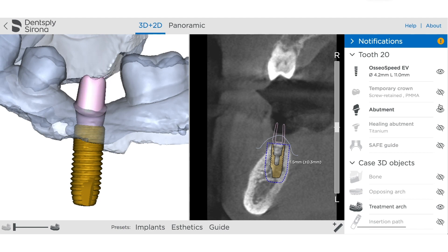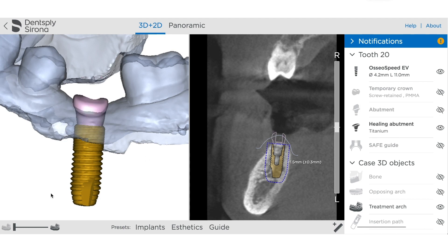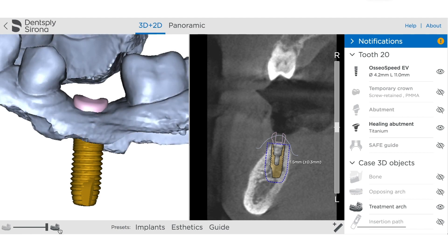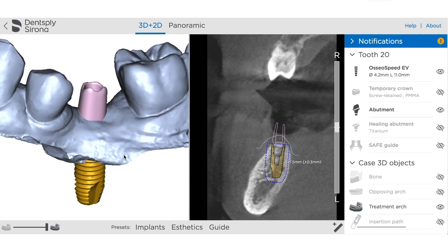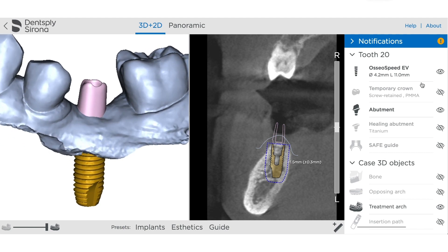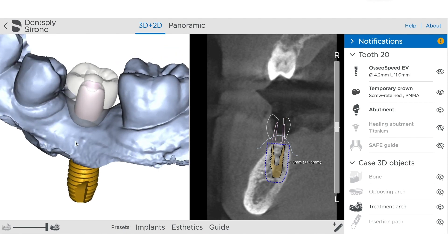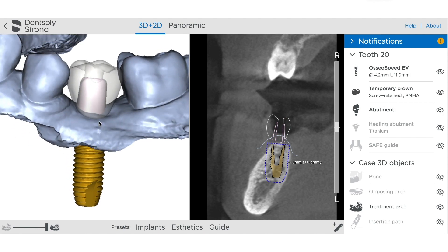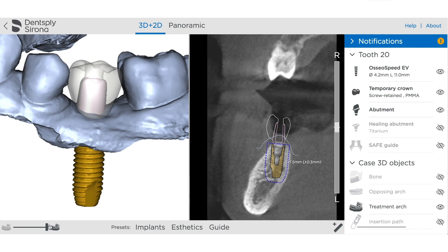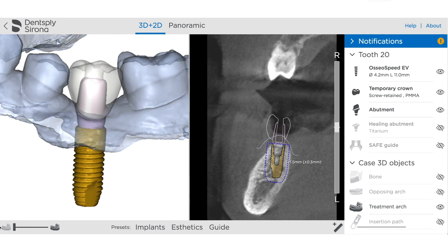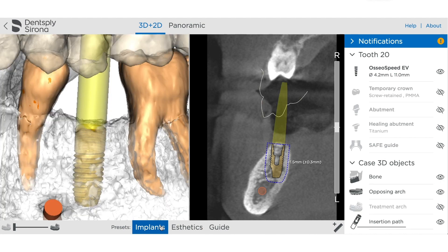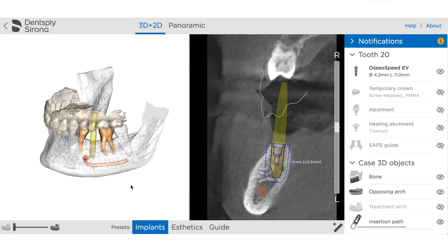We want to start by taking a look at the restoration and evaluate everything about it, starting with the implant position. Make sure we like our healing abutment — keep in mind if you're going to be placing a temporary on top of that healing abutment, that needs to come into play here. We want to look at our final abutment design, see how far subgingival it is, check all the contours, and make sure the crown that's been designed has acceptable contours. Being able to adjust the translucency off and on is helpful so we can see the margins.